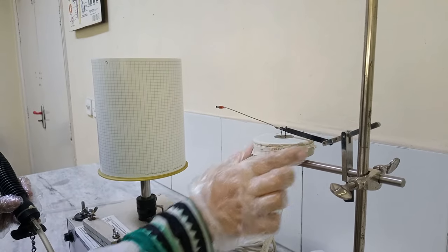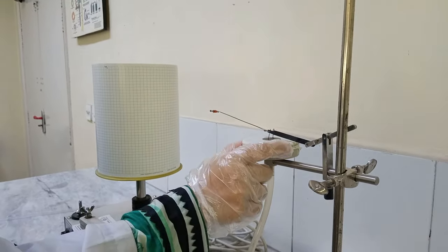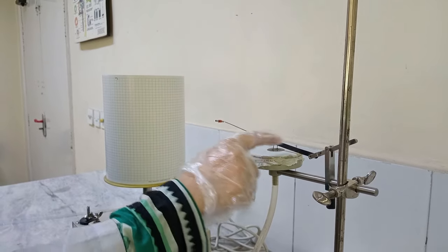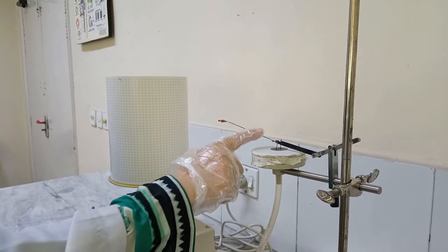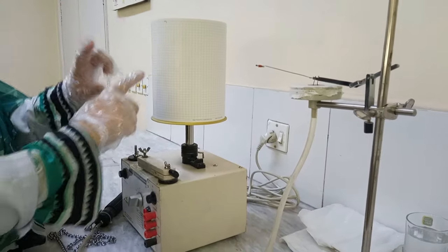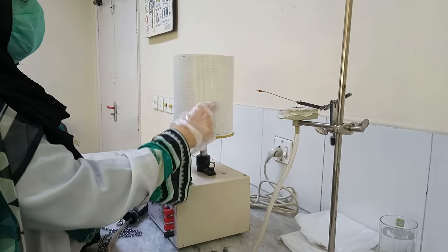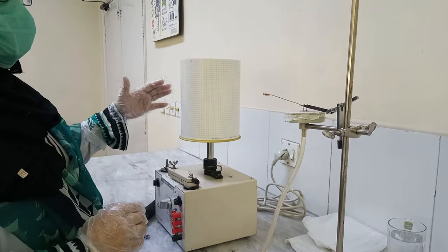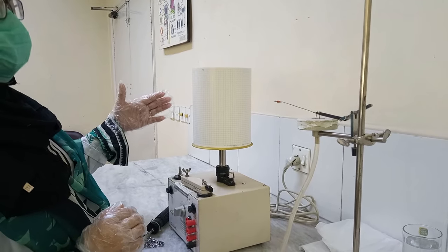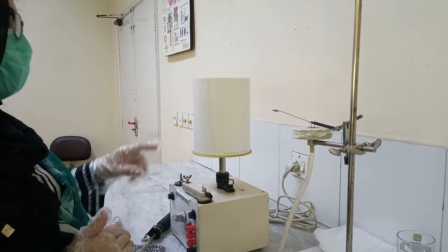The tambour is a rounded, saucer-shaped object with a diaphragm, about 3 inches in size. On this diaphragm there is a lever, and this lever is attached to a pen recorder. The pen is attached to the drum. So when respiratory movements occur, this drum moves and the pen records the changes. This is how we can record and compare how the breathing pattern changes during coughing, sneezing, and normal respiration. The next instrument is the kymograph.